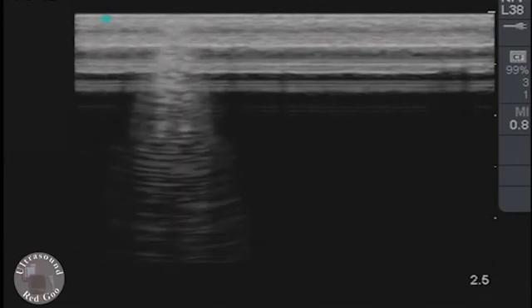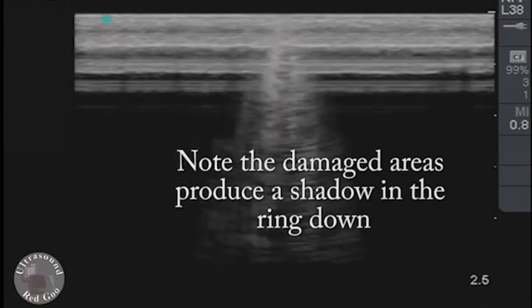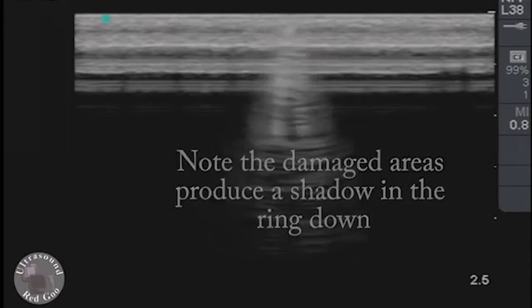Now as I'm doing this I'm seeing some areas have some weakness or shadowing. It looks like shadowing artifact. That's going to indicate a possible weak or dead element.